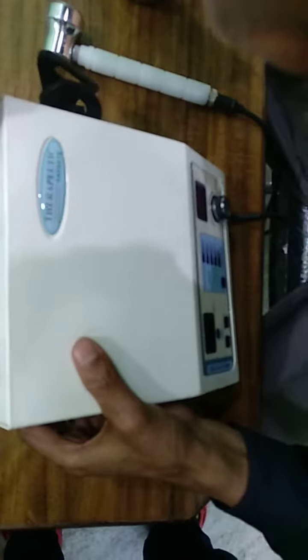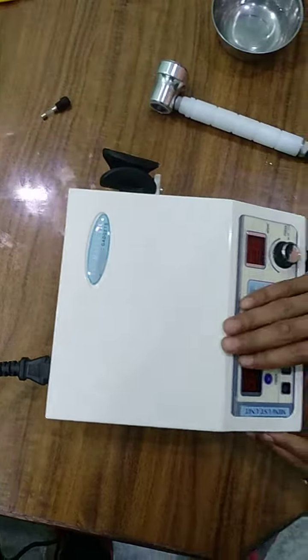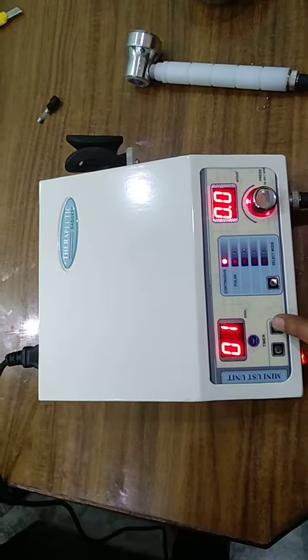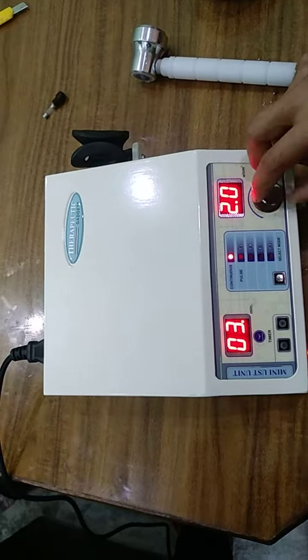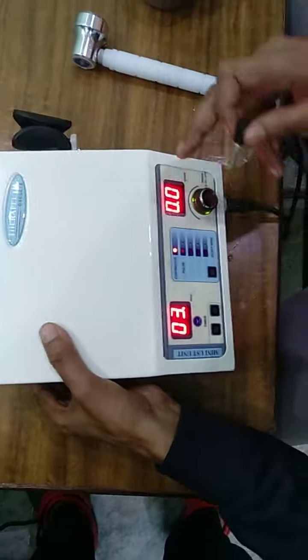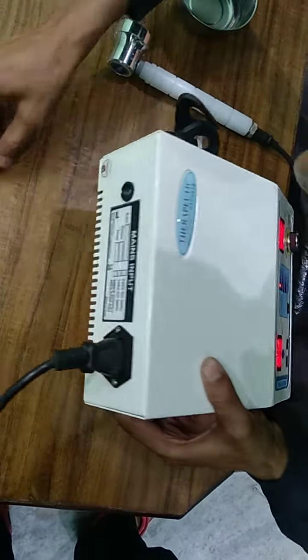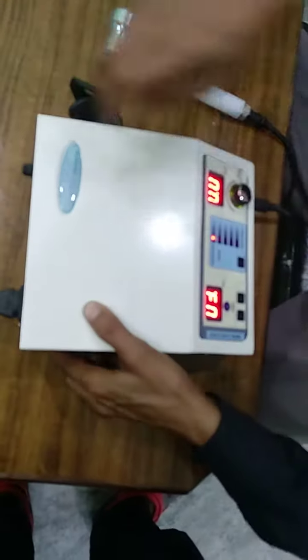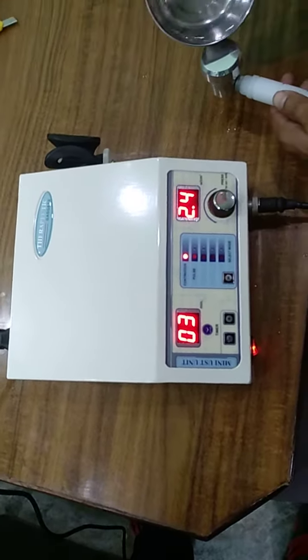I will just check that. If I remove this fuse and switch on, this fuse is not working. You set the time, but with a faulty fuse, you are unable to set any parameters. Now the machine is working perfectly with the correct fuse.